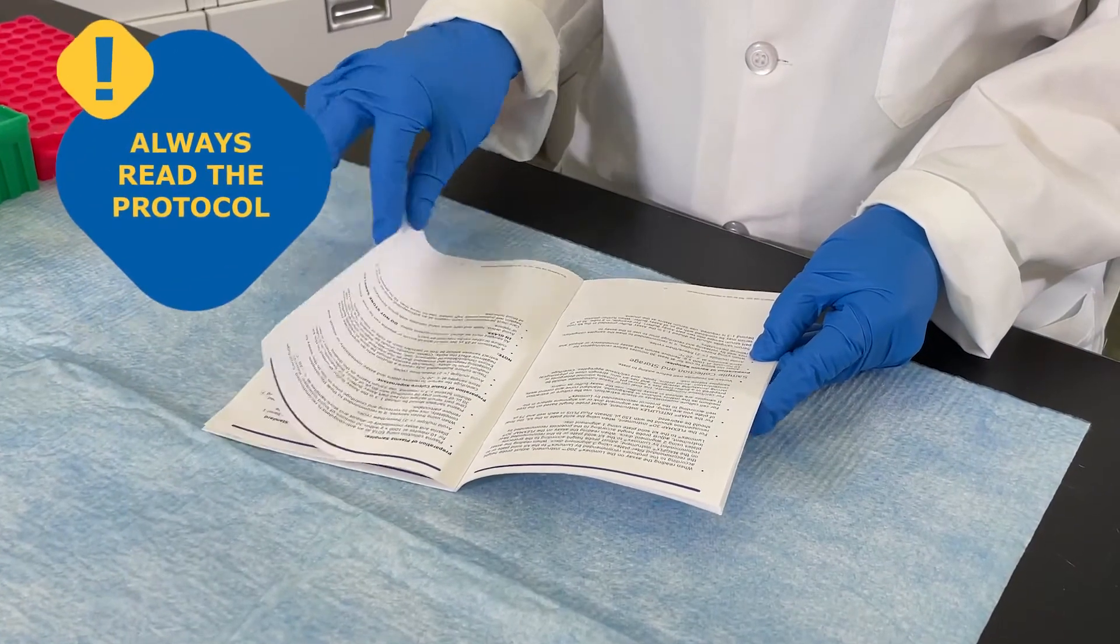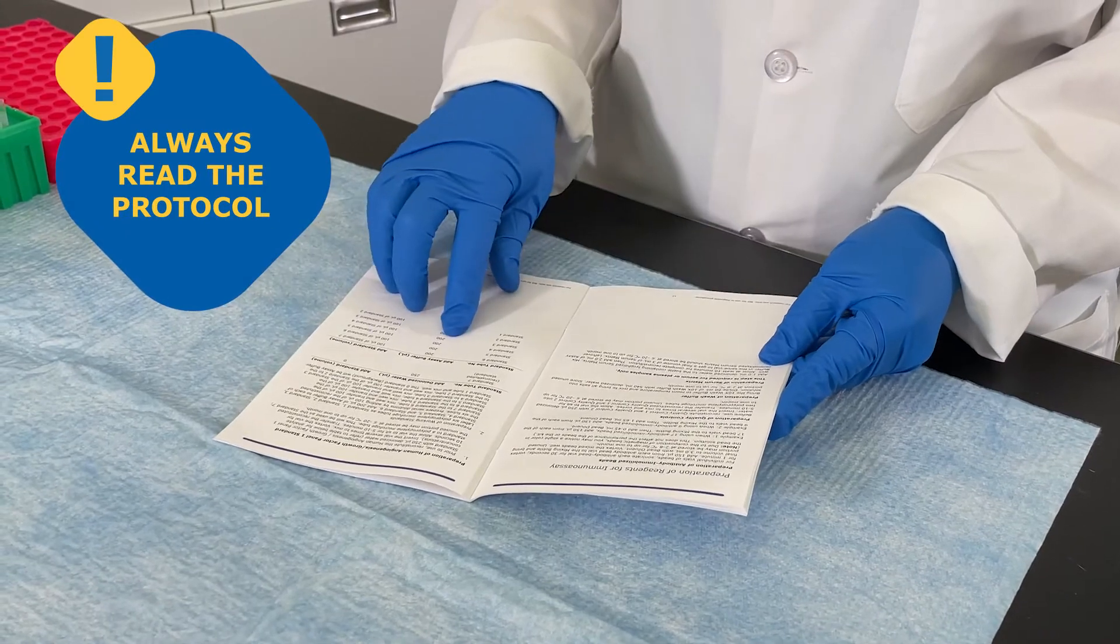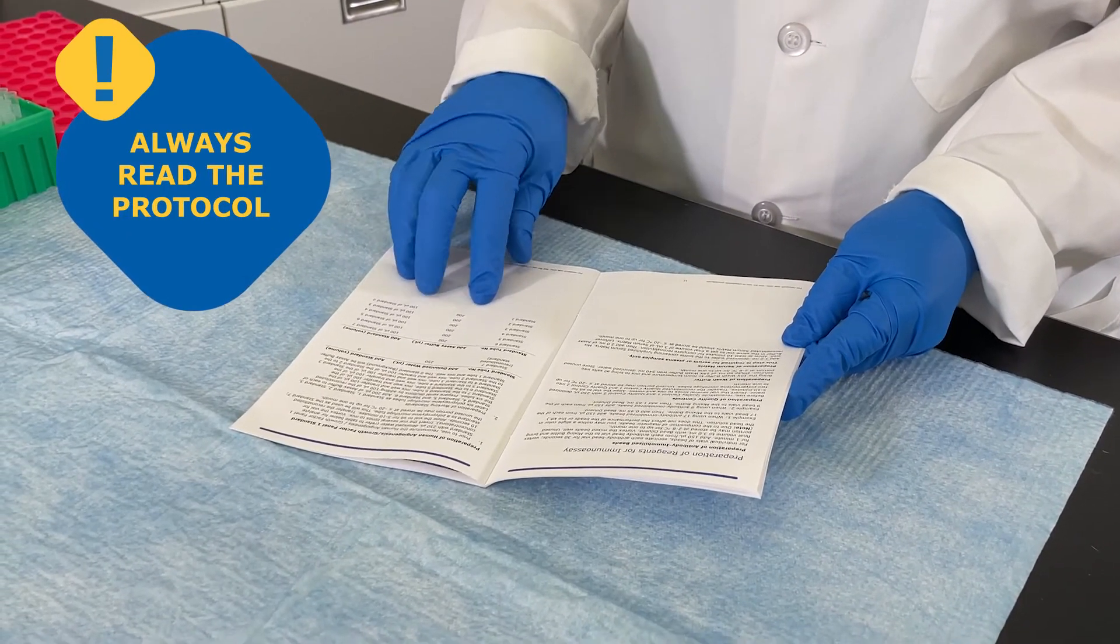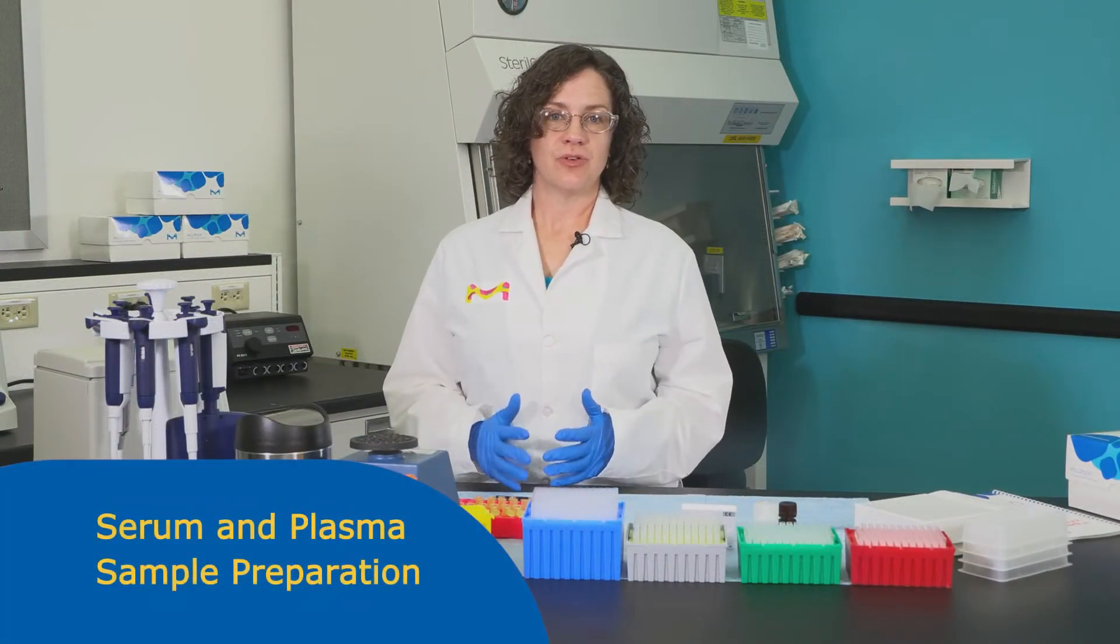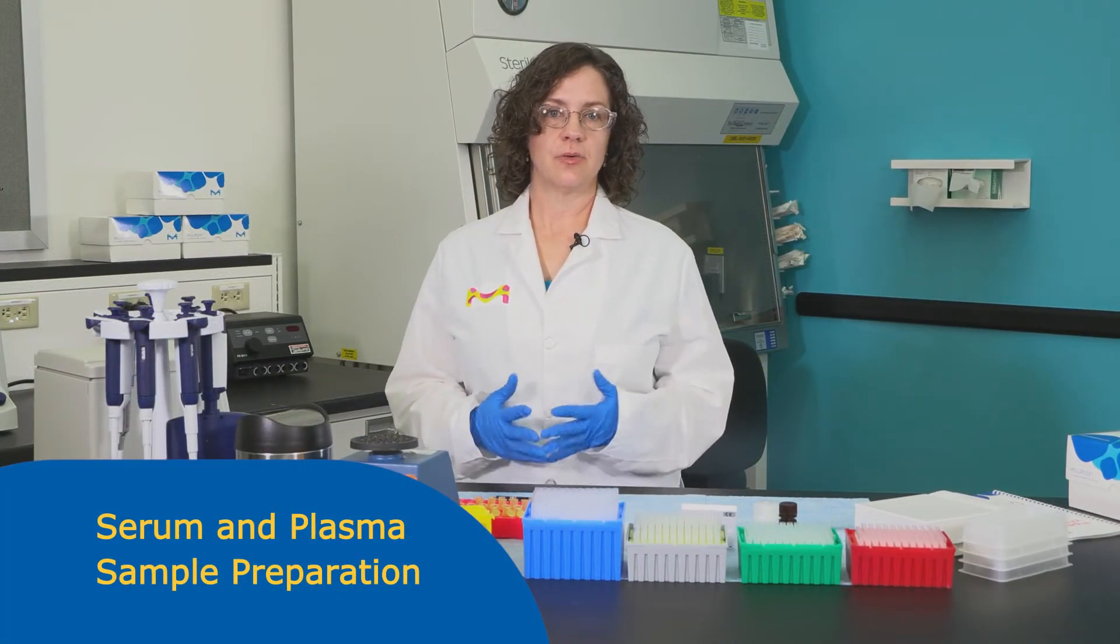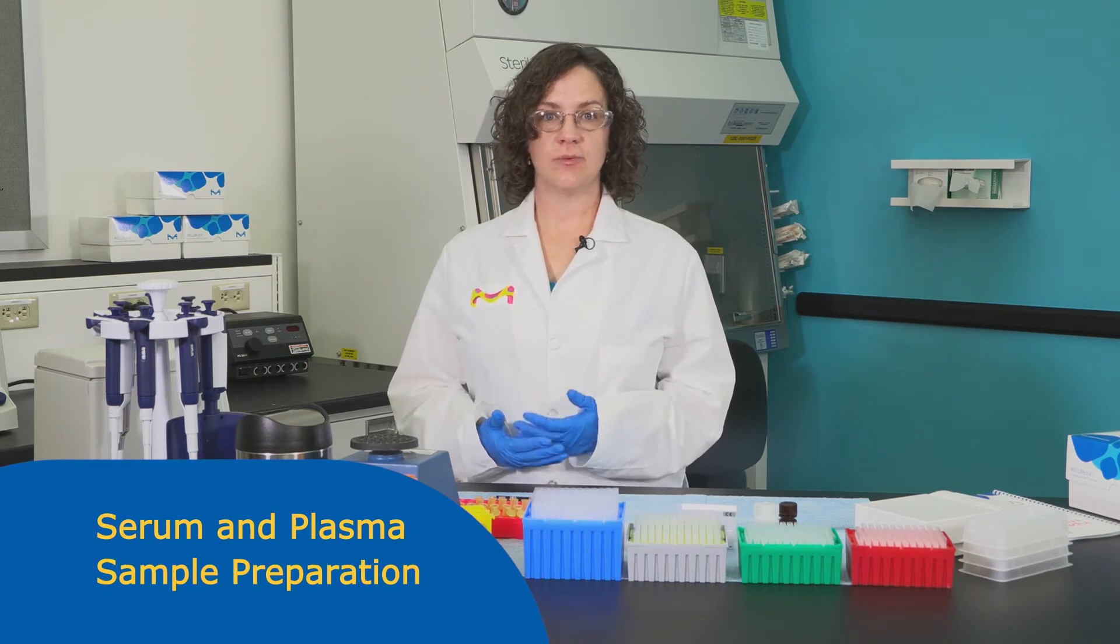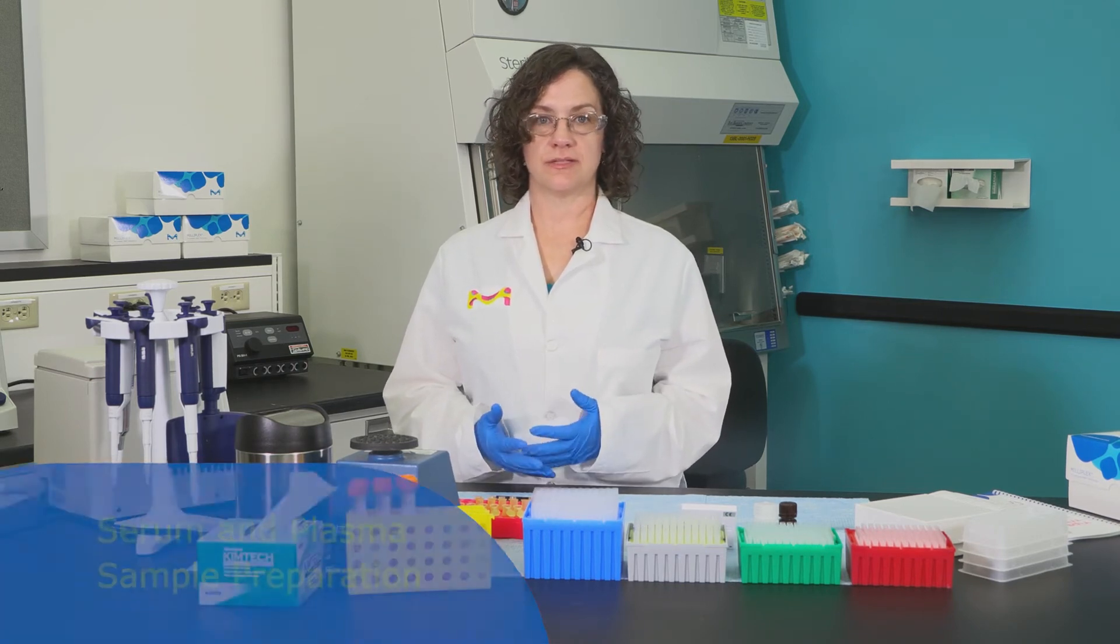Follow milliplex protocol instructions for sample handling and dilutions. Always read the entire protocol before proceeding. Analyte concentrations may differ between serum and plasma so it is important to be consistent with the use of sample type throughout a study.